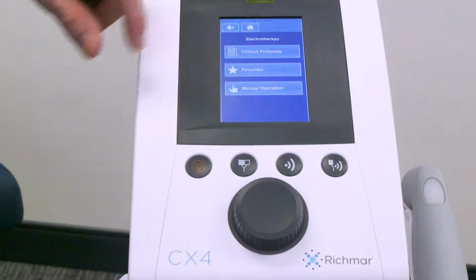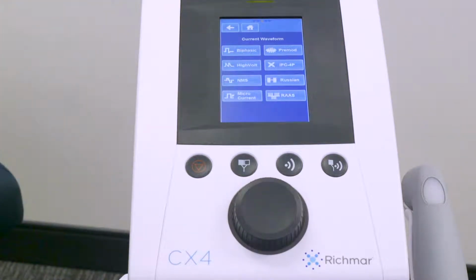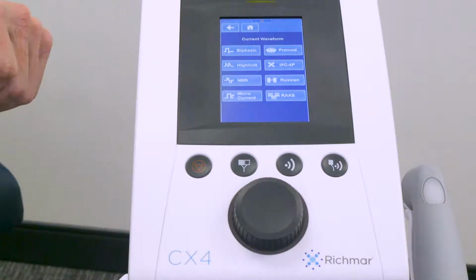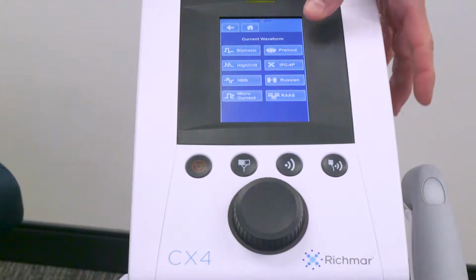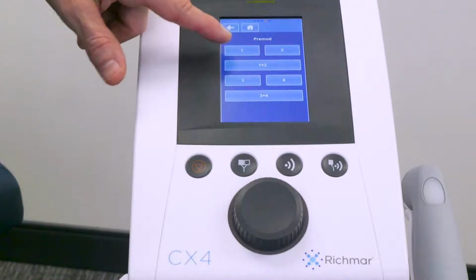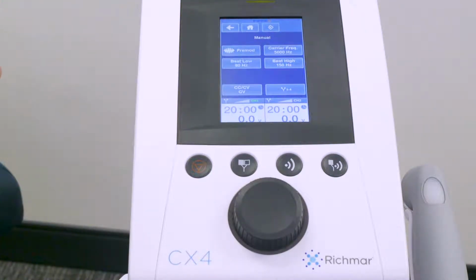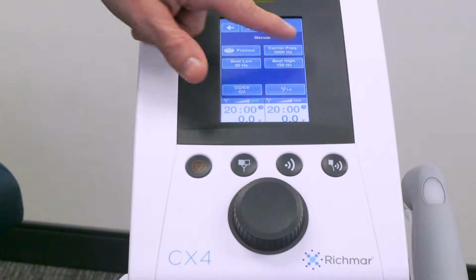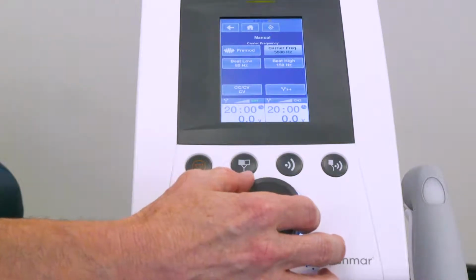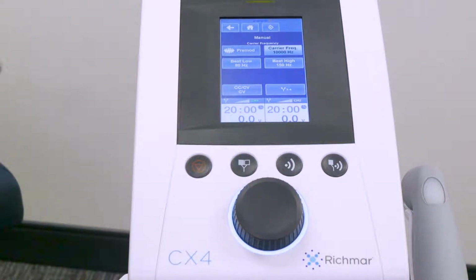I'm going to go back to the electrotherapy screen and I'm going to select manual operation. Here you'll notice 8 industry standard waveforms available for electrotherapy. I'm going to select pre-mod for pain management protocol, and I'm going to select the channel that I want to use. Once selected, you'll see a basic waveform parameter set that's fully adjustable. For example, I can take the carrier frequency, and once this dial lights up, I can now adjust my carrier frequency, for example, up to 10,000 Hertz.